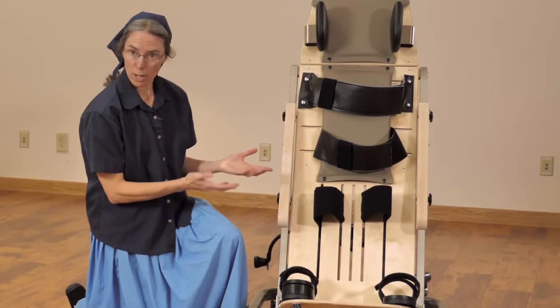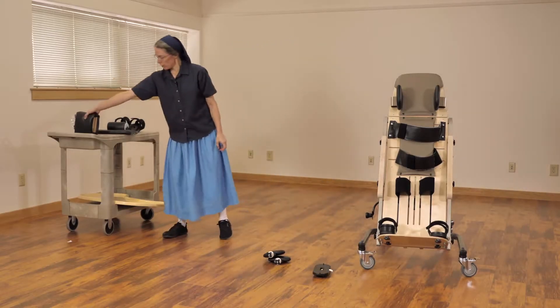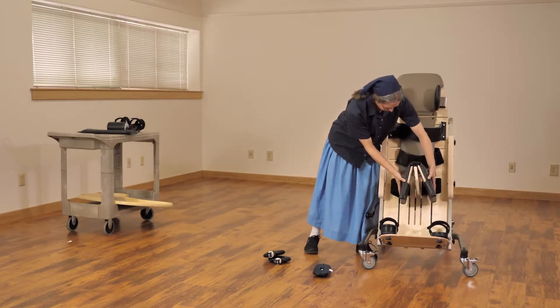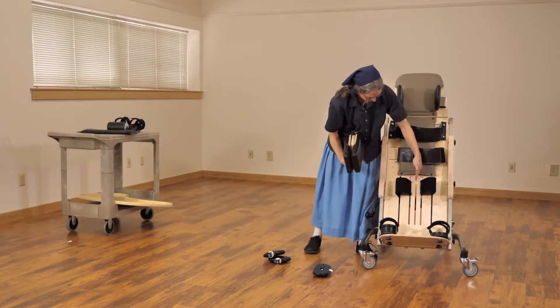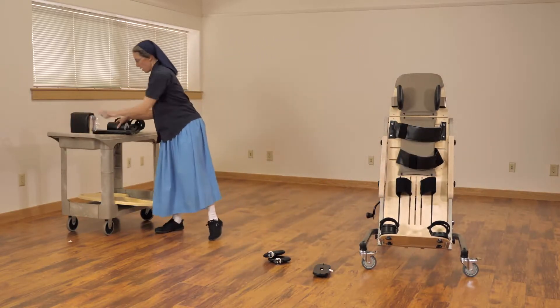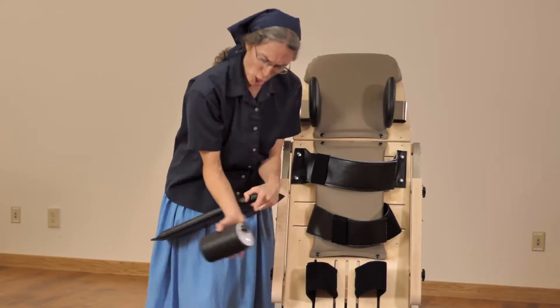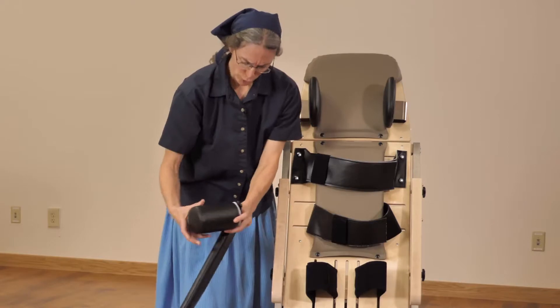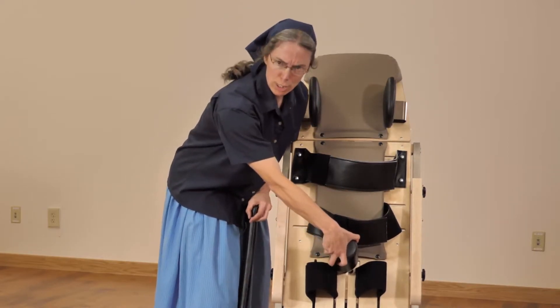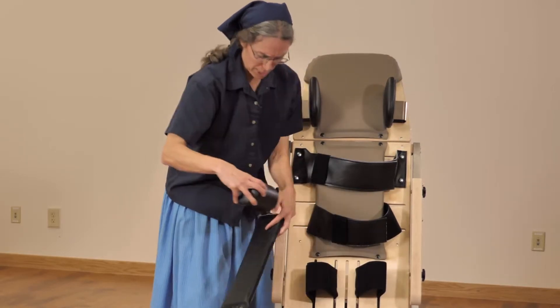We have further options for leg separation. These include a simple abductor placed in the central slot, as well as a round abductor with the knob offset, so you can simply and easily rotate it to get just the precise position you're looking for, as well as moving it up and down.